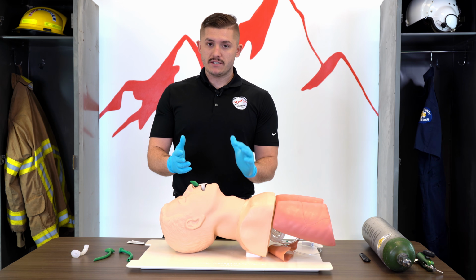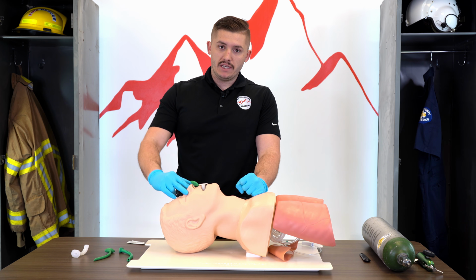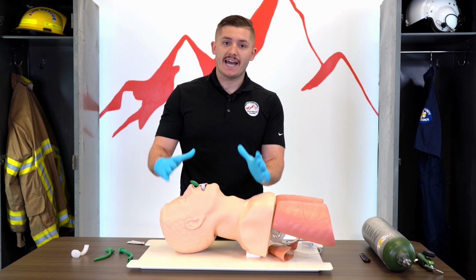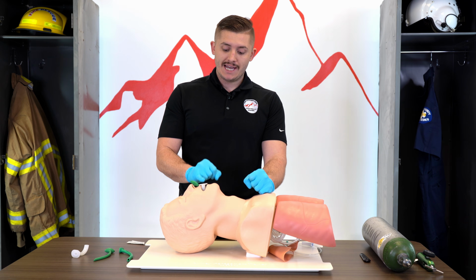If you're an EMT basic and you're in charge of the airway, do not be afraid to place an OPA and 2 NPAs. This will control and manage your airway very, very easily and open it up very, very well and make actually delivering breaths much easier. So if you have the time, please go ahead and place 2 NPAs and an OPA.